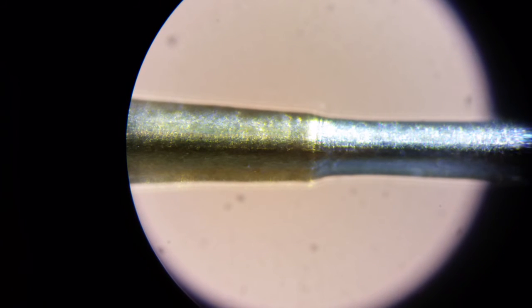And there's a little bit more left. This sensor actually was my longest sensor I've had in a long time and went almost five weeks, I believe.